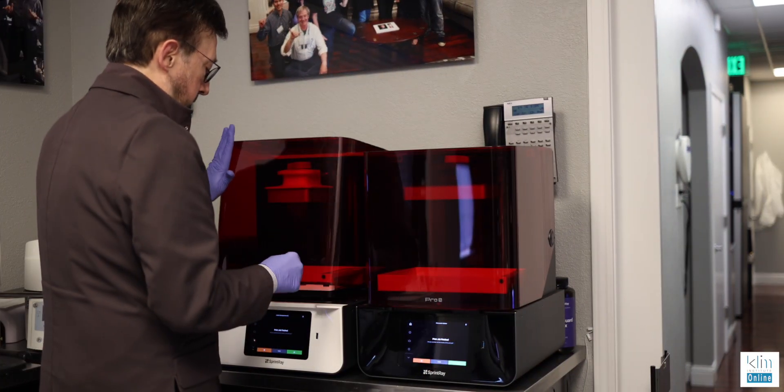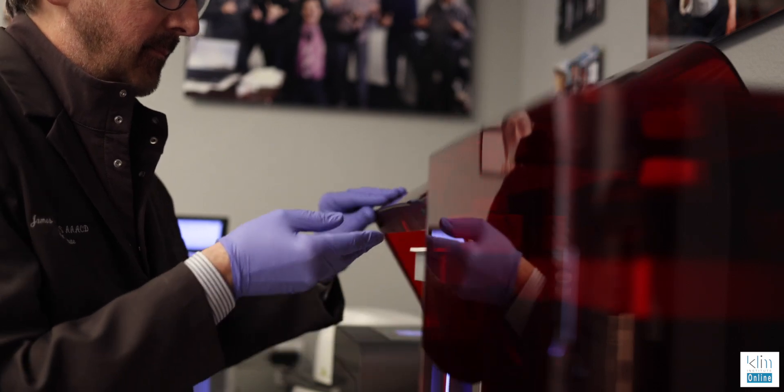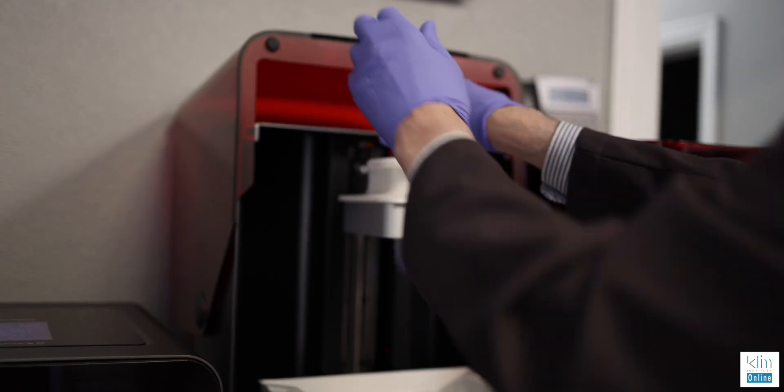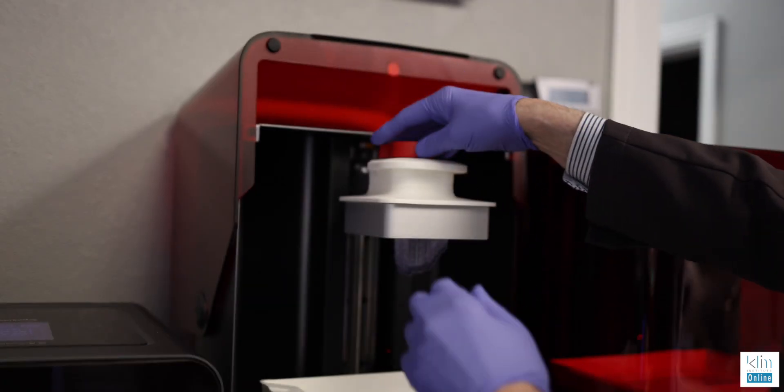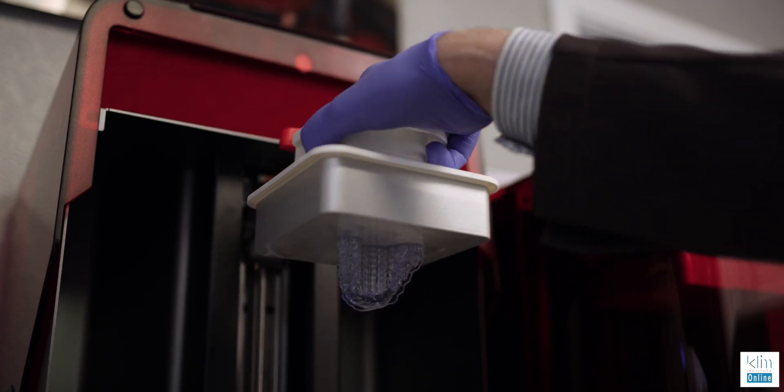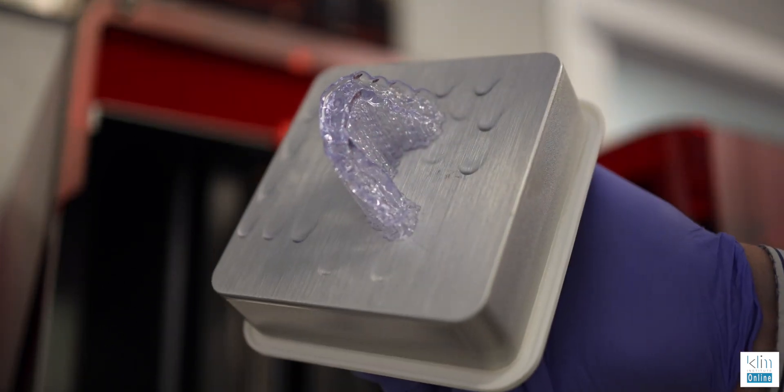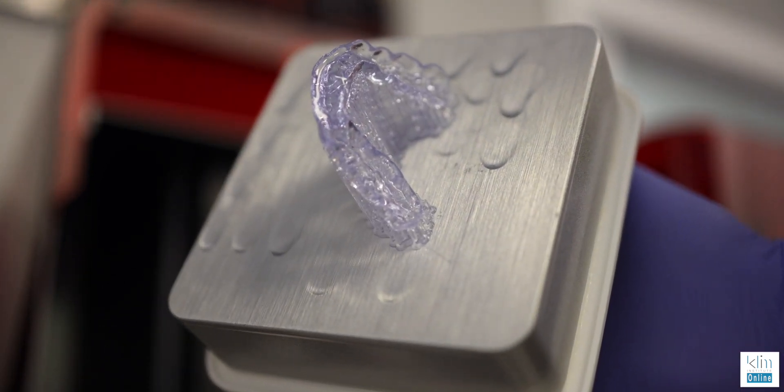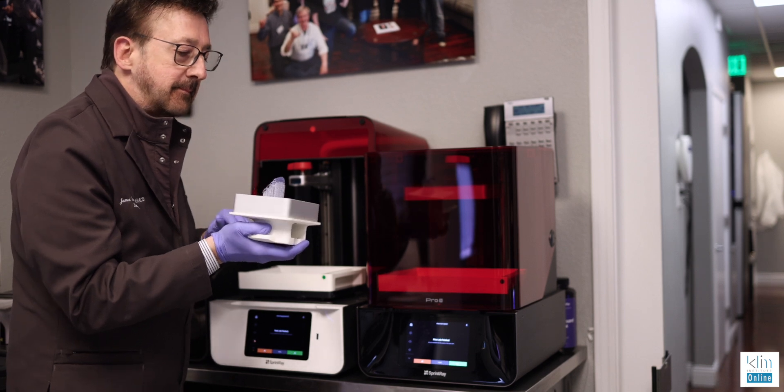In our office, we have fallen in love with the Sprint Ray system. They've worked so well with the Ray Cloud and the workflow. It's really easy to do and delegate. And this video will show you how I get through making a splint, and it's for myself, by the way.